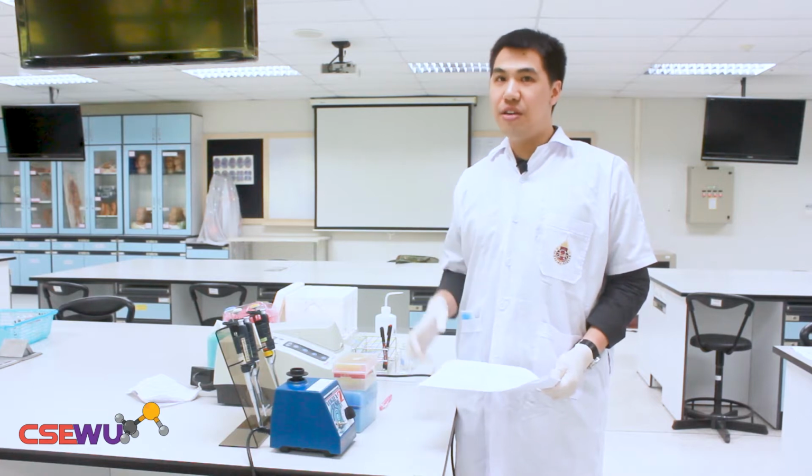So I just want to ask you first, can you differentiate between blood plasma and blood serum? Today we're going to use the biological sample called serum. So first you should know the difference between plasma and serum.